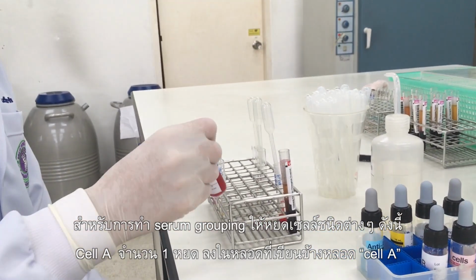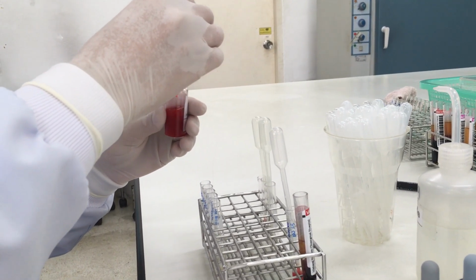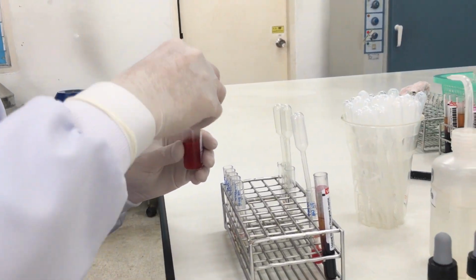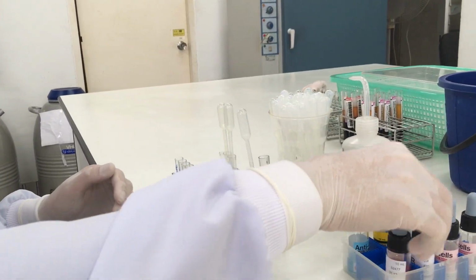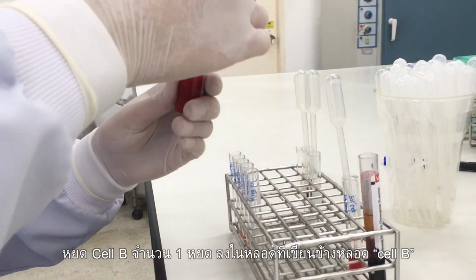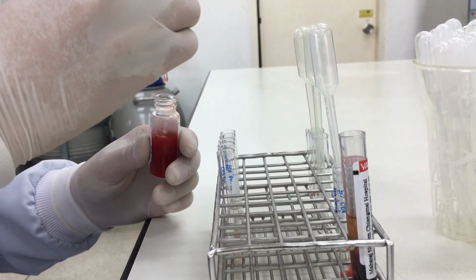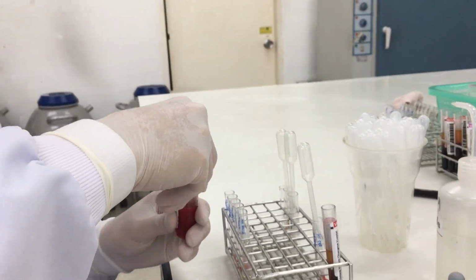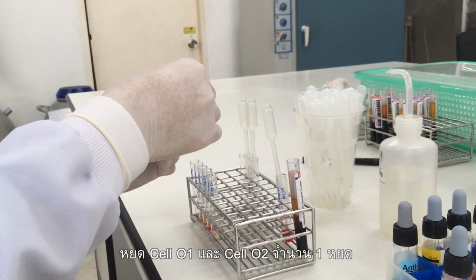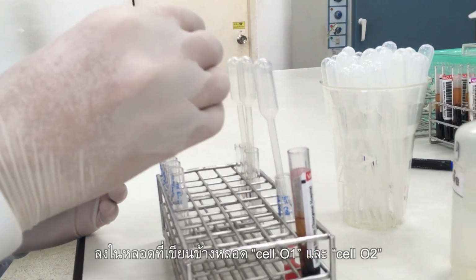Transfer 1 drop of reagent cell A into test tube label cell A. Transfer 1 drop of reagent cell B into test tube label cell B. Transfer 1 drop of reagent cell O1 and O2 into test tube label O1 and O2 respectively.